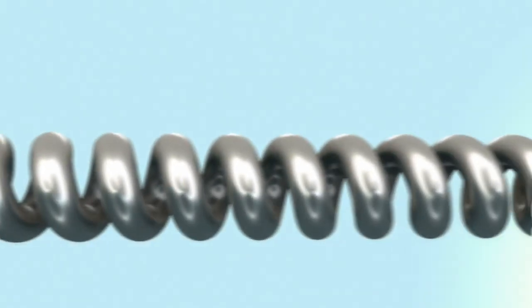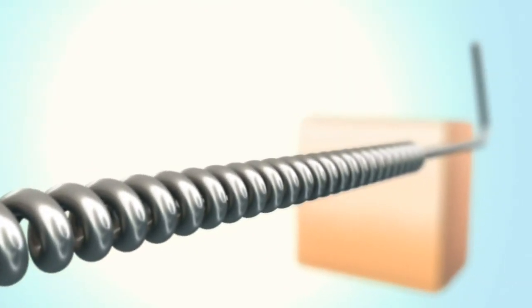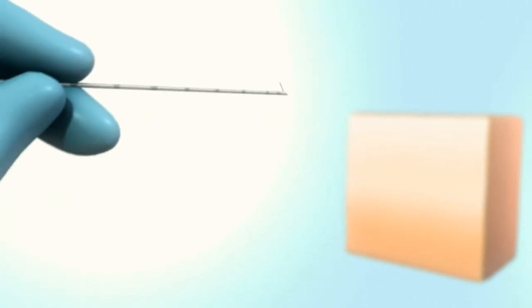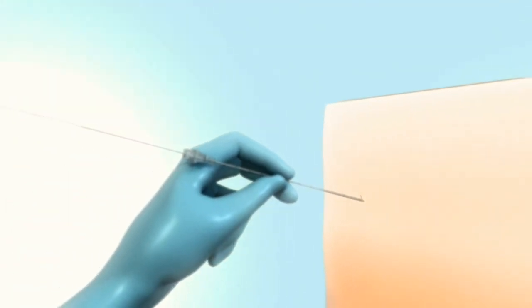SPR Therapeutics has developed a percutaneous peripheral nerve stimulation system intentionally designed to meet the needs of the interventional physician. No cuffs, no incisions, no tunneling.